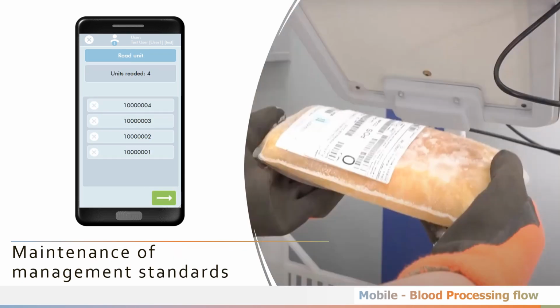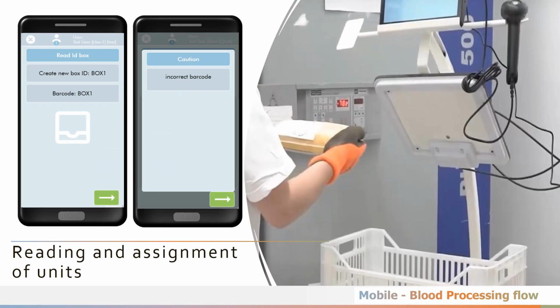The blood management system has standards that are difficult to adapt when the workflows change, for example when the equipment or the operator's actions change. Our SCWeb system allows information to be integrated by managing changes and guaranteeing that the blood management system maintains the standards. It is possible to read the units and assign them to transport boxes, which we will identify in the next workflows, as well as send a warning of their state to the workers involved.